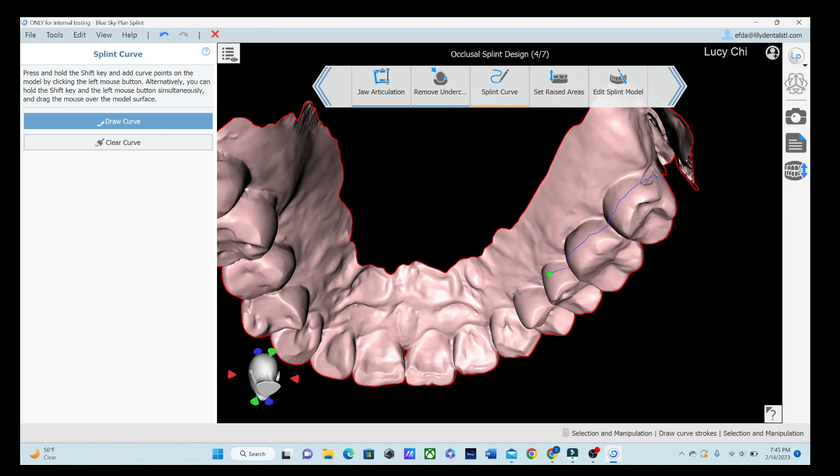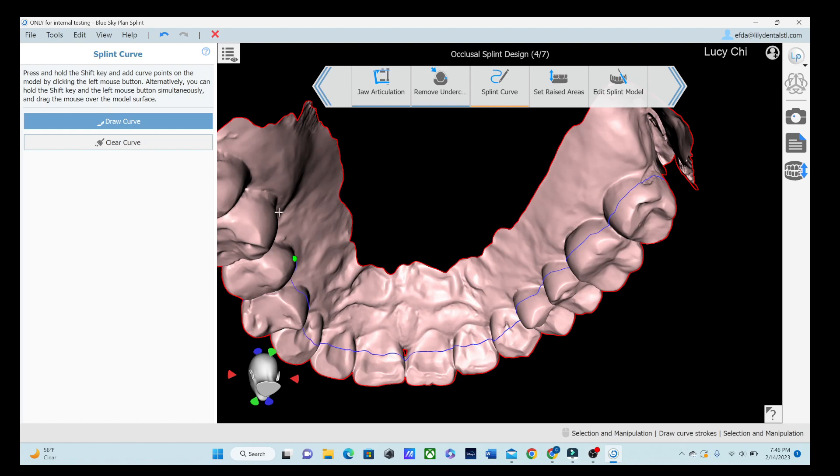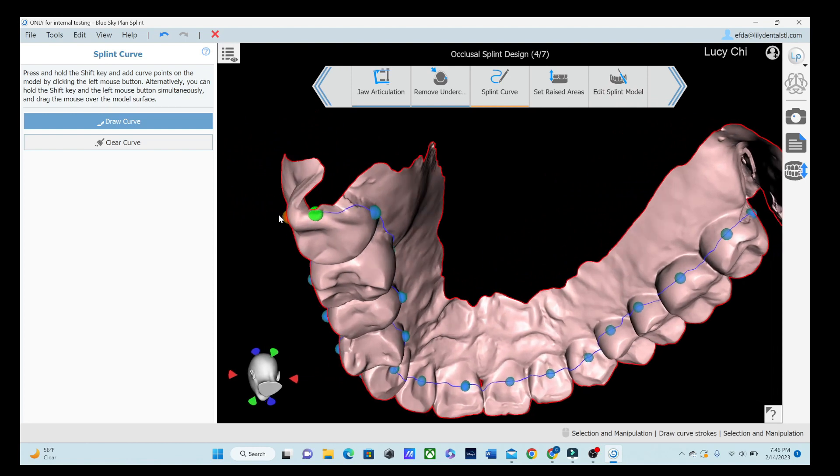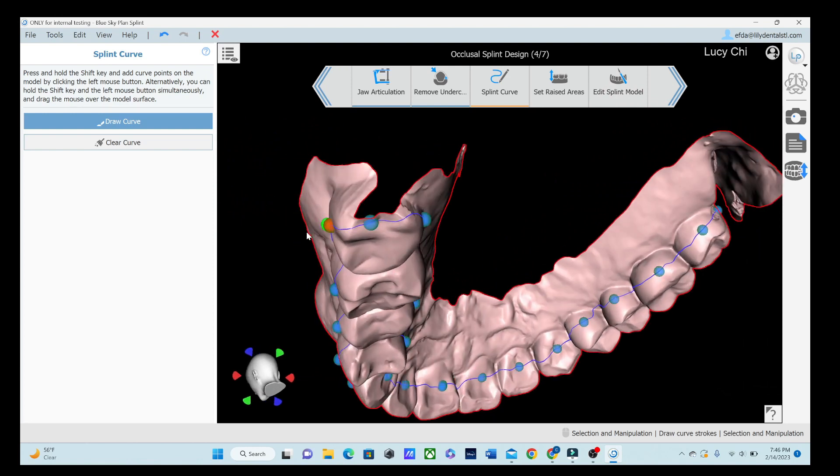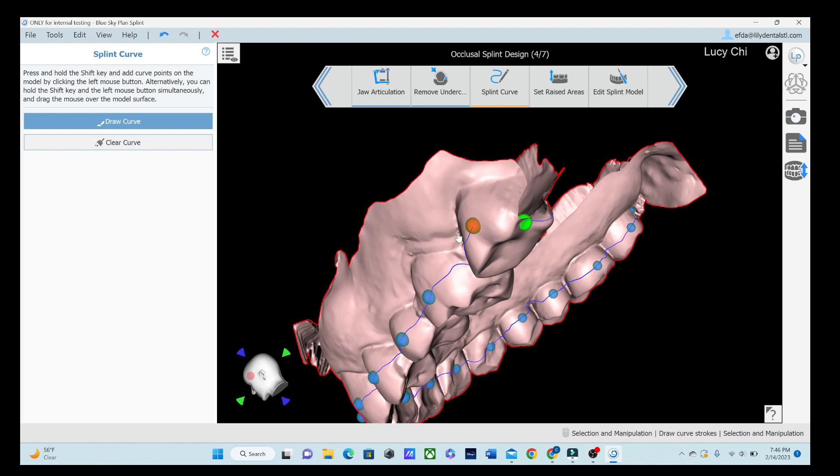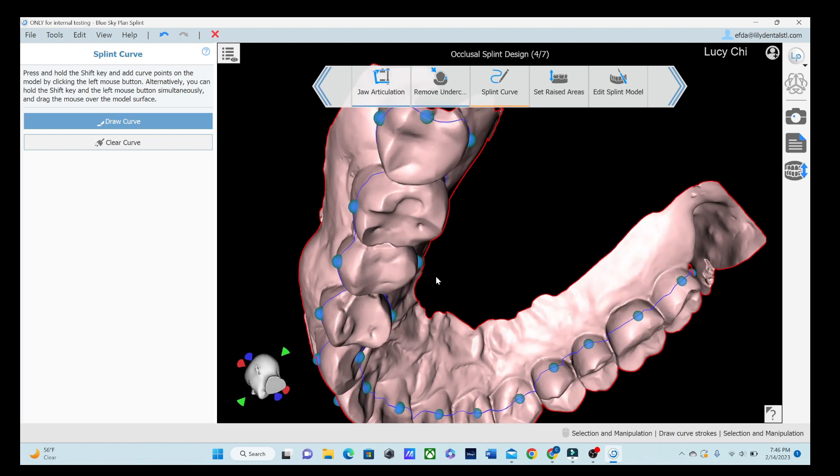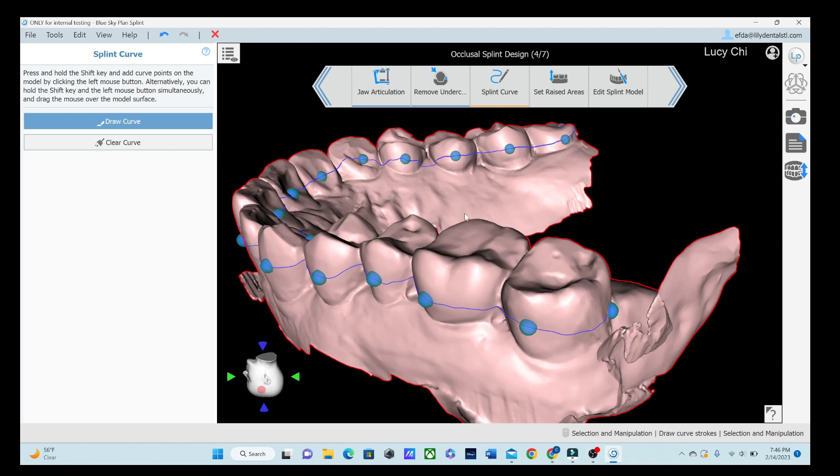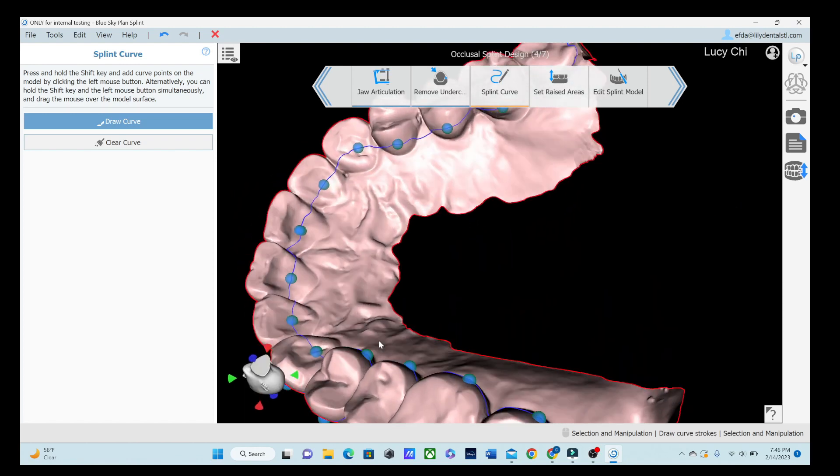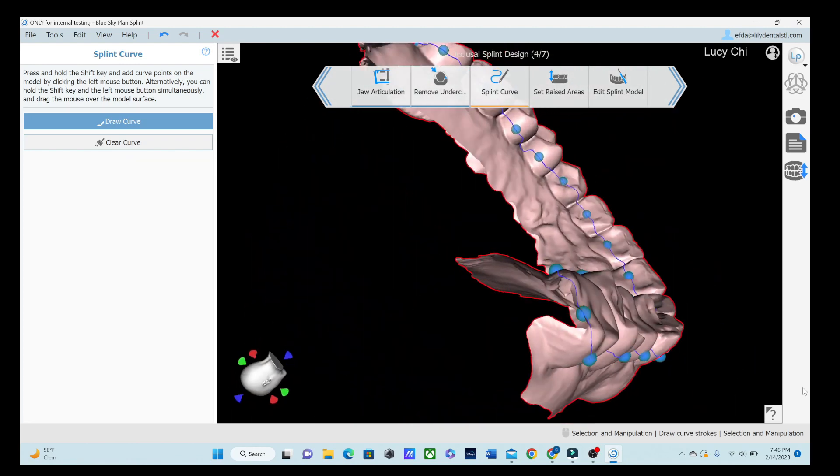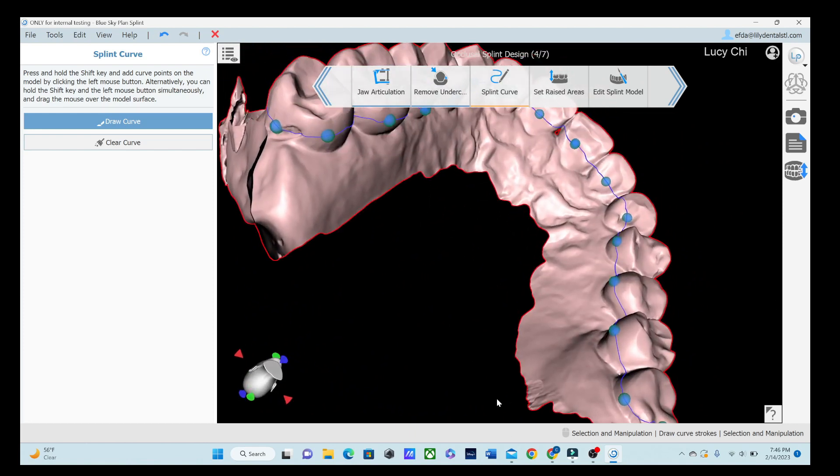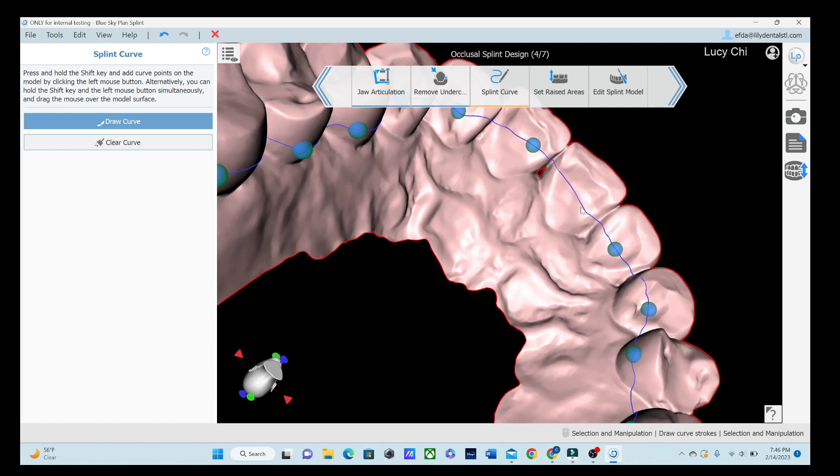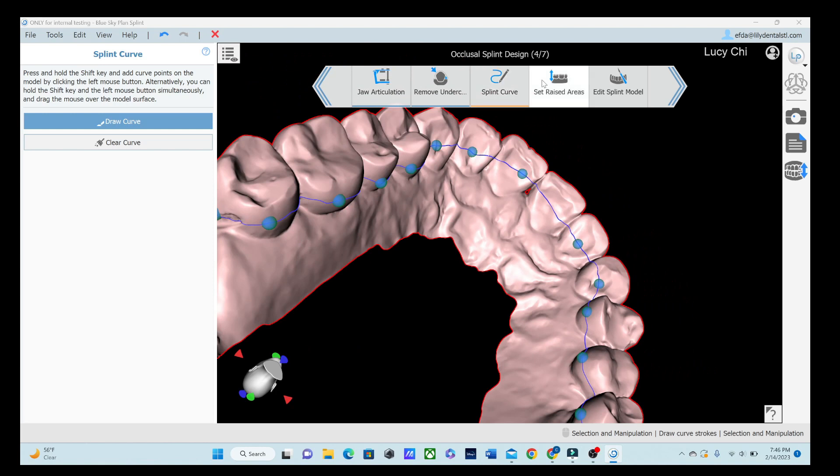I'm going about halfway up, but if you mess it up, that's okay. You can come back and you can adjust these. I don't suggest, like, don't go back right now and try to adjust them because it'll confuse the computer. See, it did that one. So then we'll just keep going and then I'll show you how to adjust them when you're done. If you try to adjust them while you're drawing it, it'll get really confused. See, like, even those didn't. There we go. And I didn't get all that data right there, but that's okay. See, that one needs to be brought up. I'll bring that one up just a tad. Okay. And we'll bring these up just a little just to make sure they don't interfere with that area. Okay.